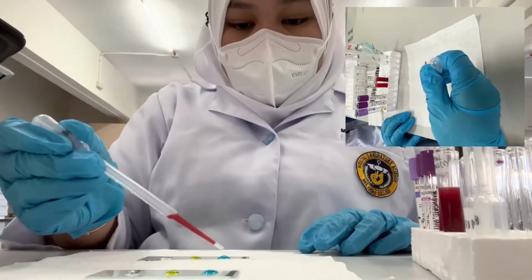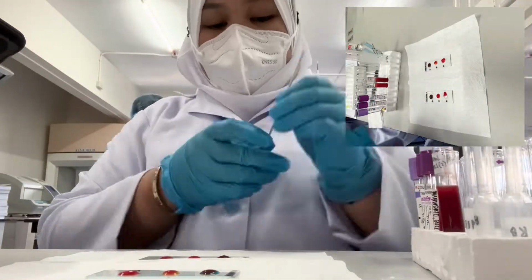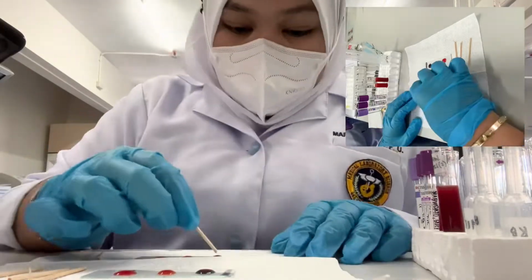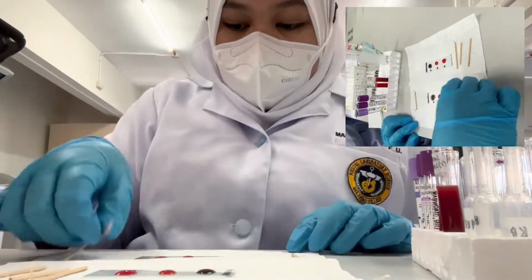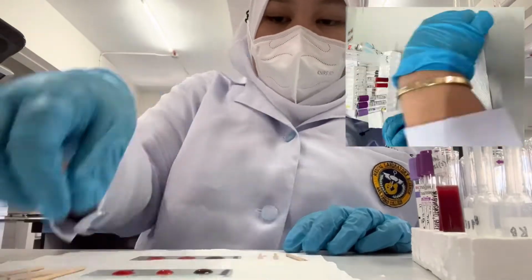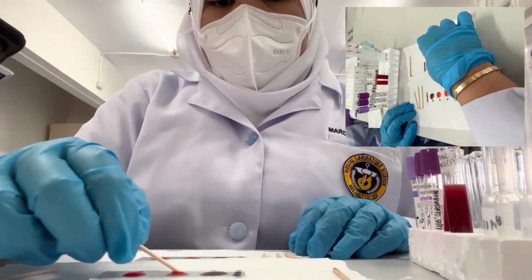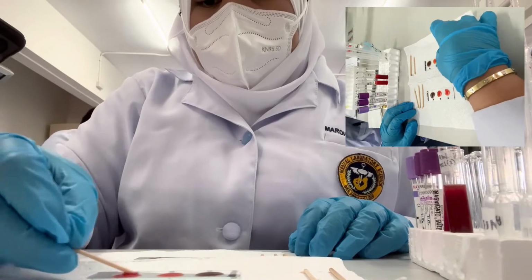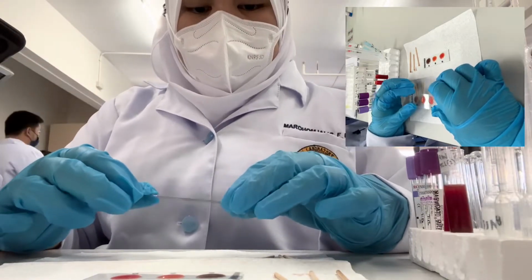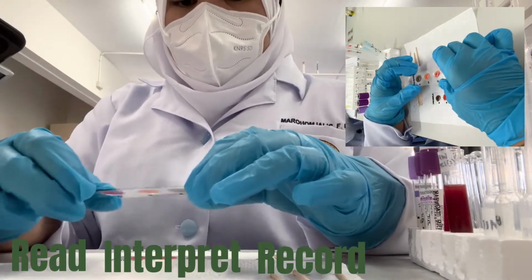Step 3, add 1 drop of 4% red cell suspension to each drop of reagent on the slide. Step 4, mix the reagents and the red cell thoroughly using a clean applicator stick for each reagent. Step 5, gently tilt the slide from side to side continuously for up to 2 minutes. Step 6, read, interpret, and record results of the reactions on each mixtures.